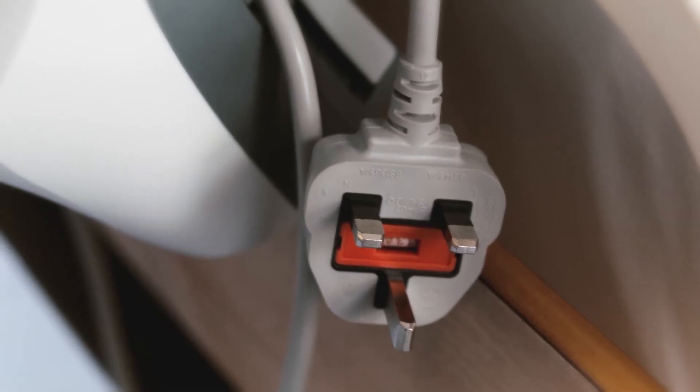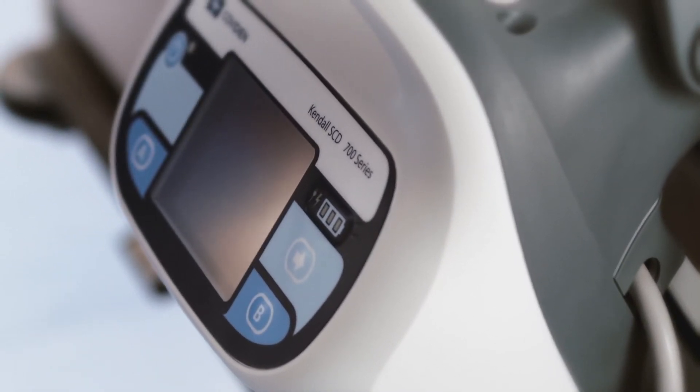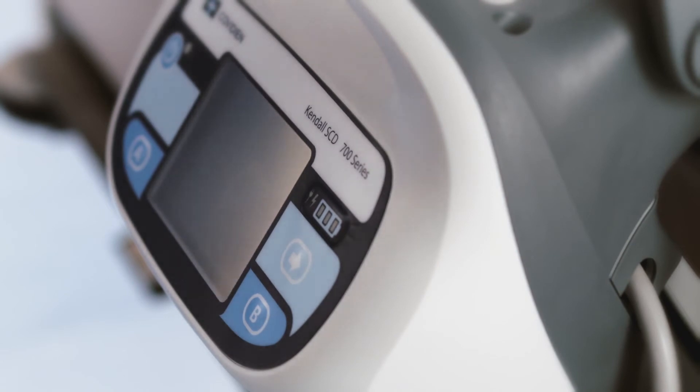Plug the controller power cord into a properly grounded socket. If no mains power is available, the controller has a battery that will provide up to eight hours of power.